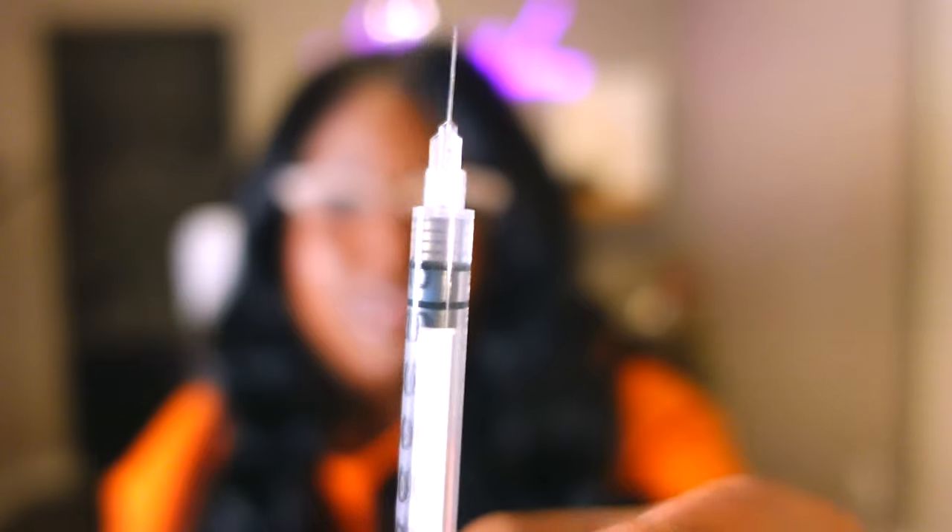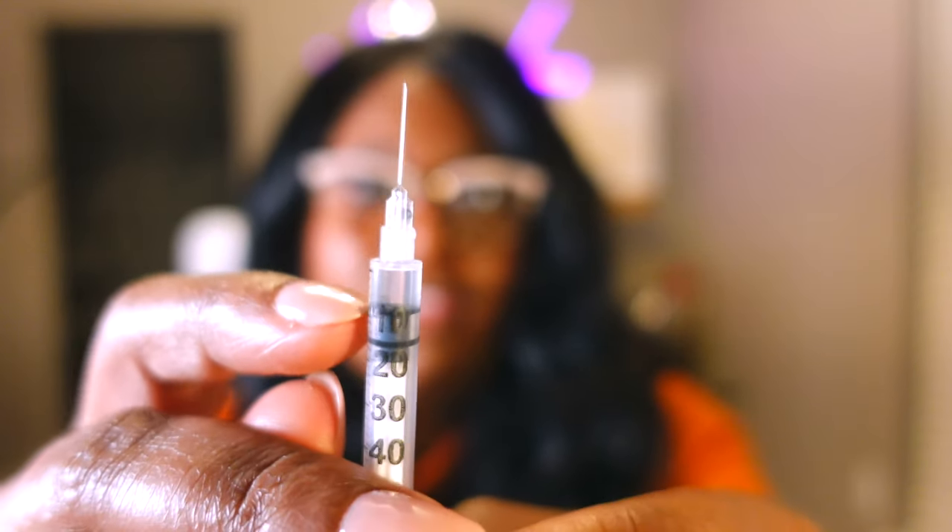This was right at 10 units. So you can see the liquid right here in the top — that's extra insulin that was in the pen. So I'm going to use these two tonight to supplement my insulin injections. I will have to open another pen anyway, but it'll be really interesting to see. It's all the same insulin, so it should work just fine. I tend to get about 10 units out of every pen, which is nothing to sneeze at — 10 units is a lot of insulin, especially when it's so expensive and it's liquid gold.